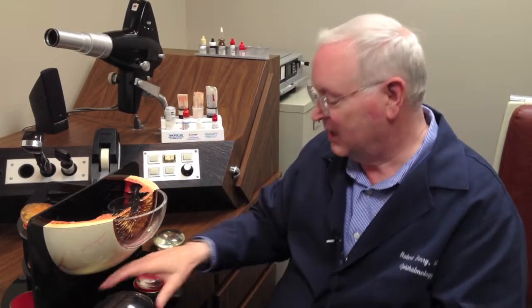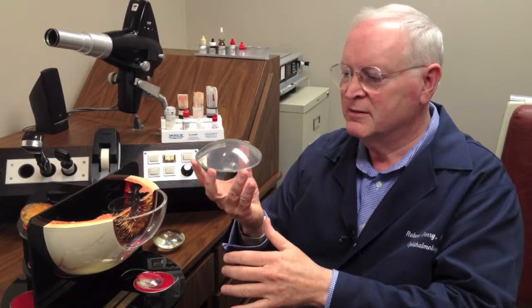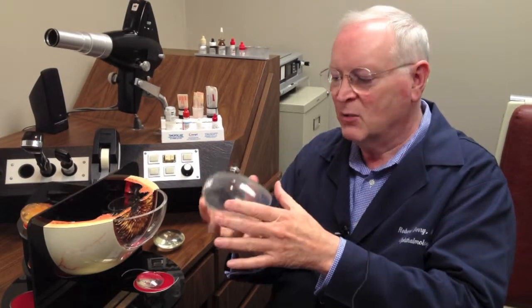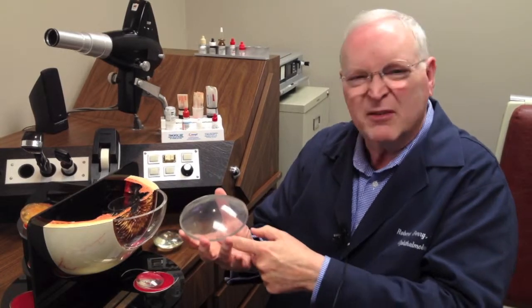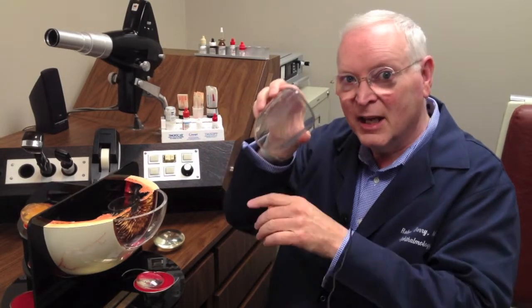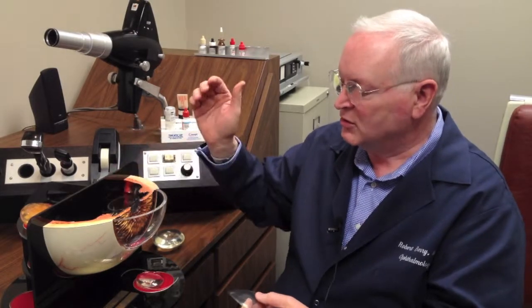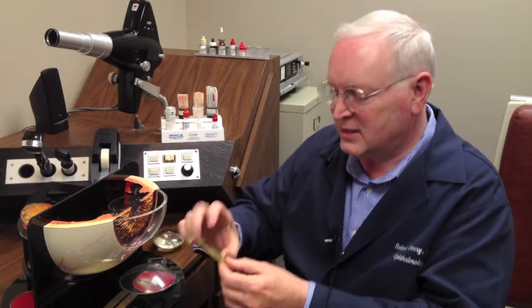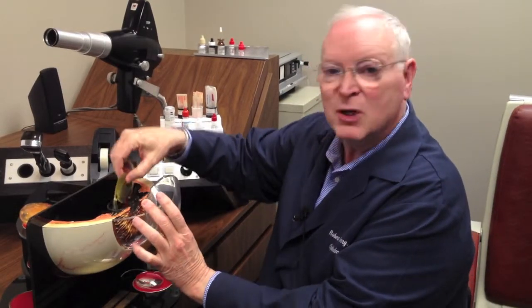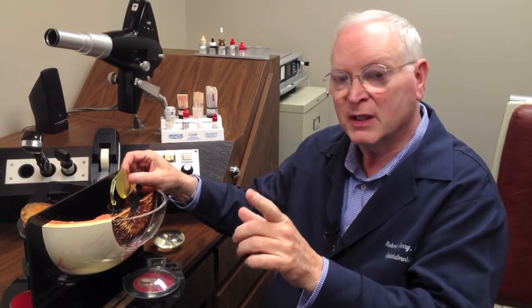Now you've got to know what astigmatism is. Here's my cornea, and it has the same curve this way and this way — same curve all the way. Now if I've got astigmatism, I've got a different curve here than I do here. When the light comes through, instead of coming to a point, it'll come to a kind of a fuzzy line — that's astigmatism. How do you fix it in glasses? You take a lens for your glasses, make it like that, and turn it to counterbalance your own corneal astigmatism. When you have cataract surgery and you take the lens out, you can put a lens in that has built-in astigmatism, and you turn the lens inside the eye to counterbalance the astigmatism of your own cornea.